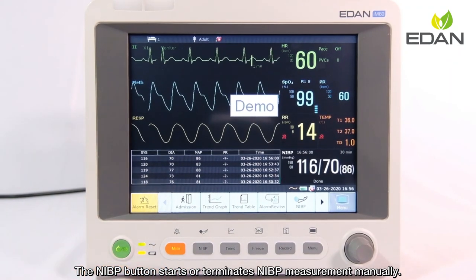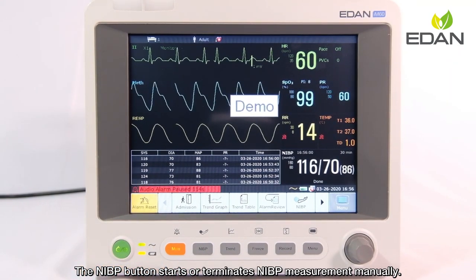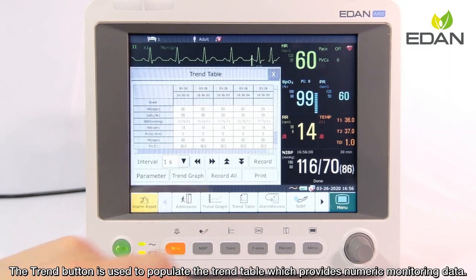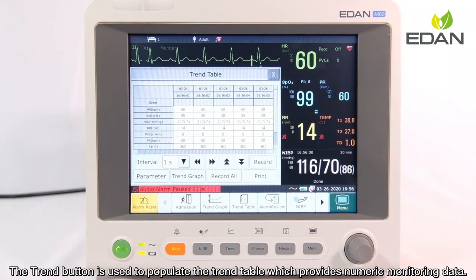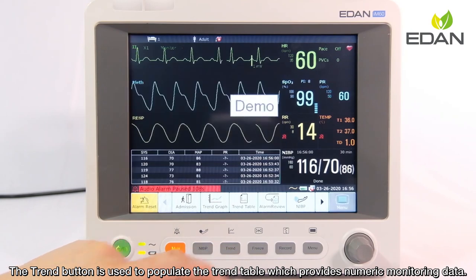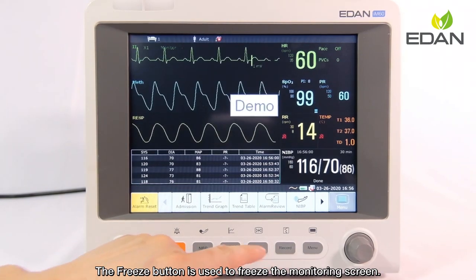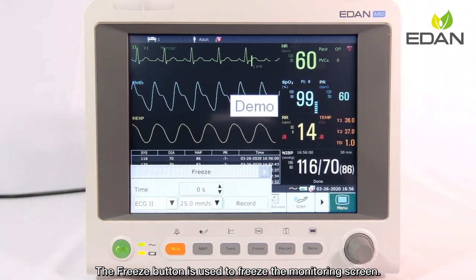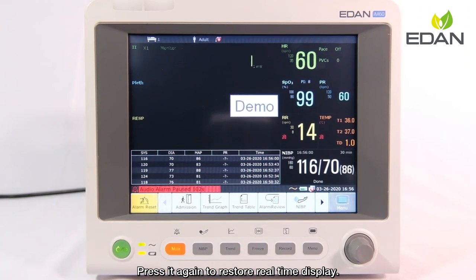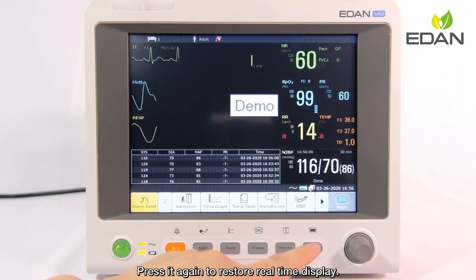The NIBP button starts or terminates NIBP measurement manually. The trend button is used to populate the trend table, which provides numeric monitoring data. The freeze button is used to freeze the monitoring screen; press it again to restore real-time display.